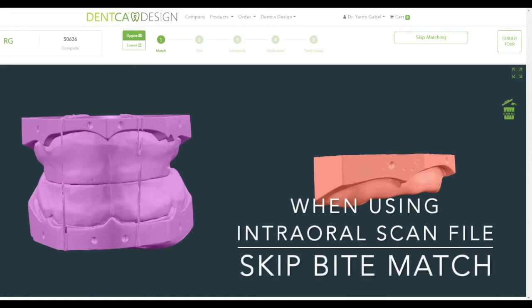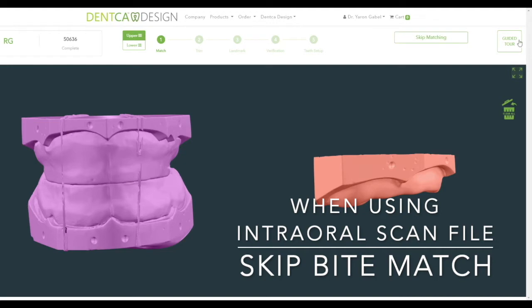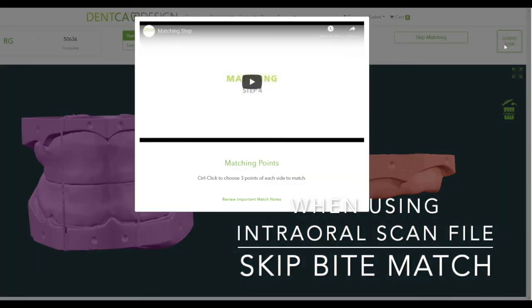Matching. Before we begin, as an important note, if your scanned files came in a pre-aligned format, you may skip the matching step by clicking on the Skip Matching button on top. Also, if you need help at any point in the design process, you may click on the Guided Tour button, which will open a window with a small tutorial for that section, as well as reviewing important notes for that step.